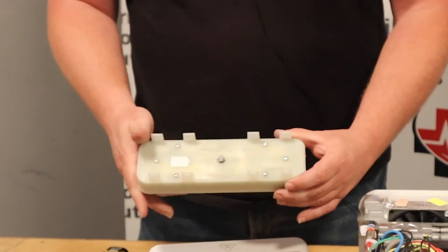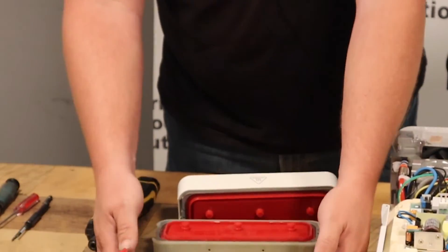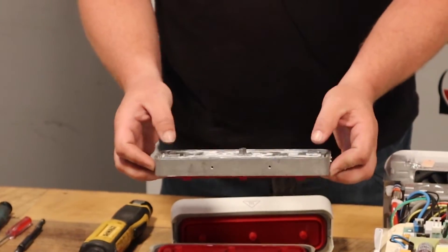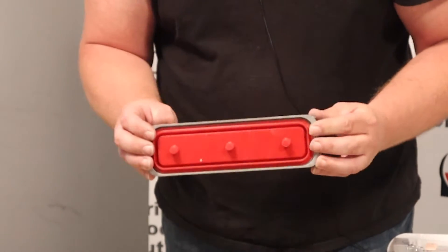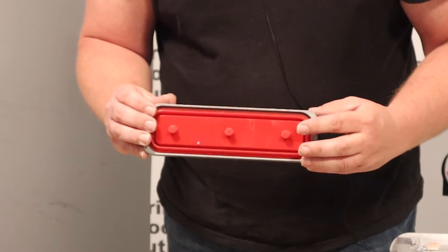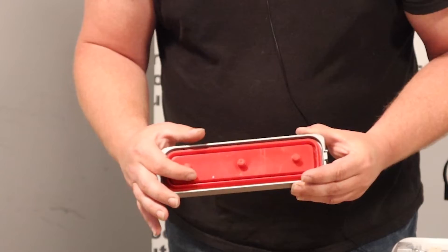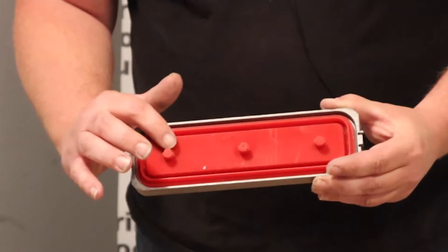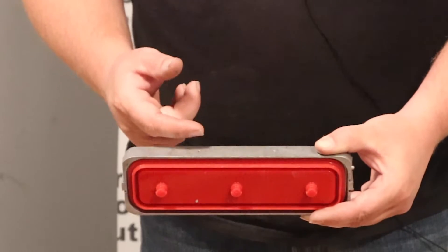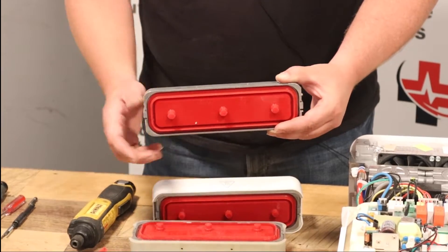From that point, you've got six screws that you would have to remove here to get to this point, and then remove these four and change the door gasket. Now, it is important that when placing the new gasket in, that it is placed in the right way. If you look, you don't have a complete circle here at the top. This bottom part that is not complete should be facing in the downward position where these two screws that lock in your door plastic are.